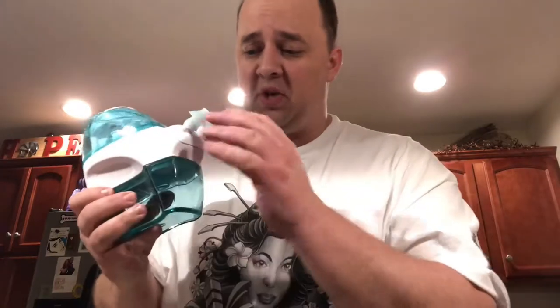You can't turn it on without the packet in there — it will not turn on. What you want to do is make sure you have a good seal in your nose. The hard part to explain is that you want to close the back of your mouth off — that's really what you want to do. It's hard to say exactly how, you just do it, because the solution will run down the back of your throat if you don't. Make sure you have a good seal, push it in — not the whole way, just a little bit until you feel the suction — and then let it go. It'll go through your whole sinus cavity.